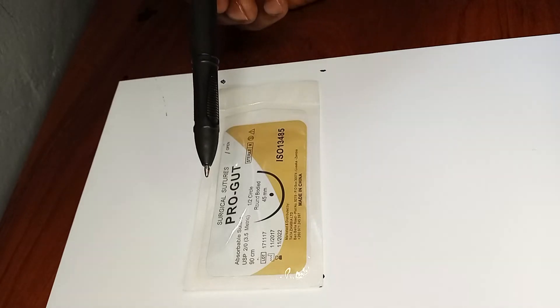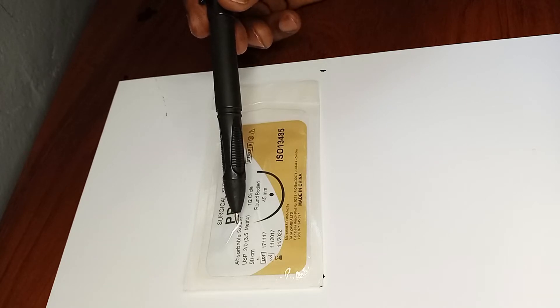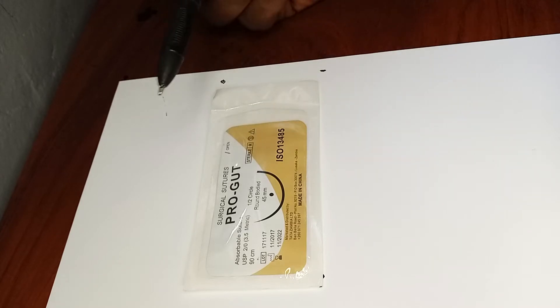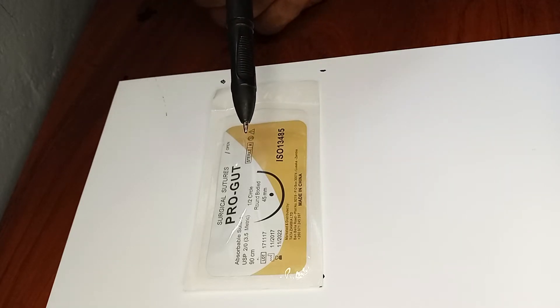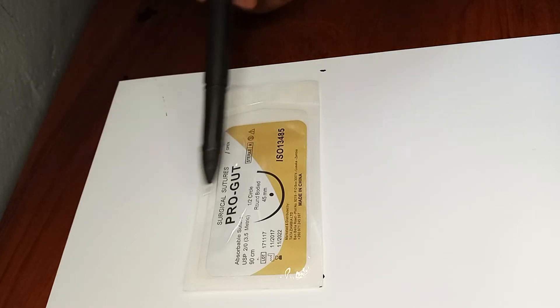It's written on the pack that chromic catgut is absorbable, so this is an absorbable suture. Where we place it, it will be there for maybe seven to ten days, after which it gets hydrolyzed and the body absorbs it. So we need to put this kind of suture where we think it won't be needed beyond ten or so days.